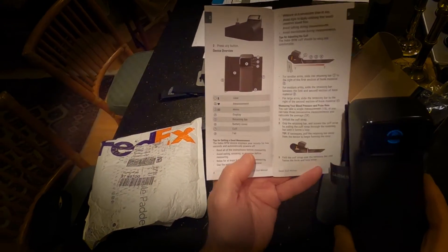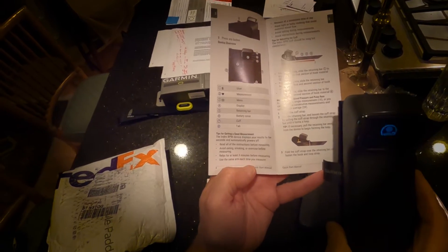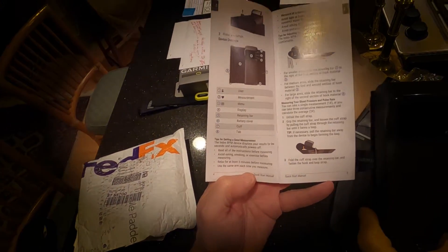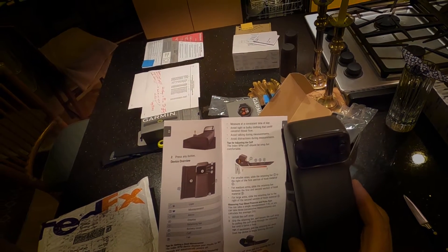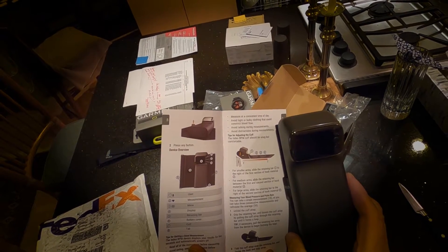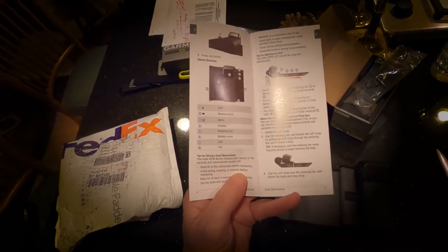Read all the instructions before measuring. Don't eat, smoke, or exercise before measuring — well, that means I'll never be able to measure. Relax five minutes before measuring — also means I'll never be able to take a measurement. Use the same arm each time, at the same time each day. Don't put big clothes under it. Don't talk. Avoid distractions.